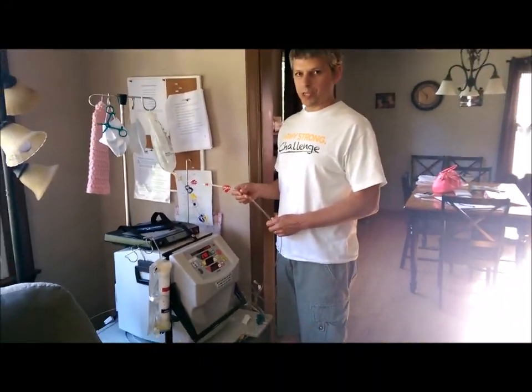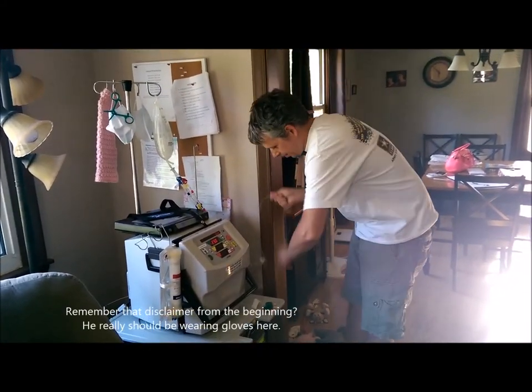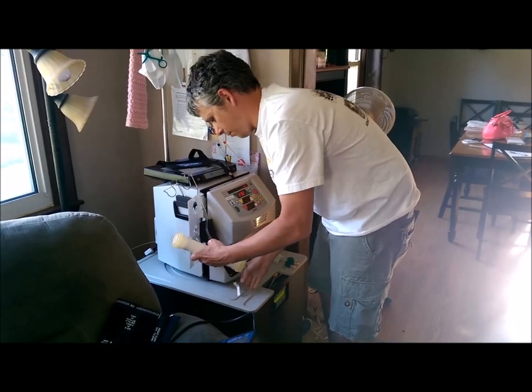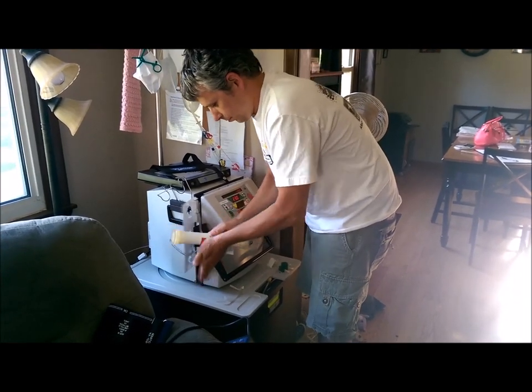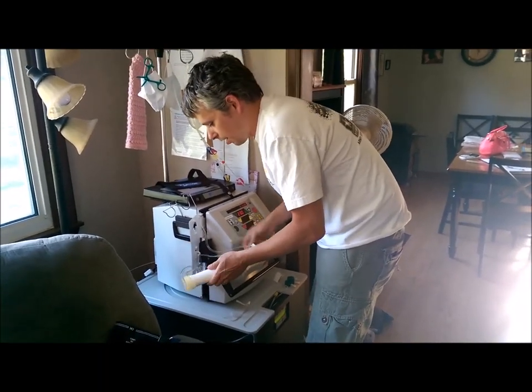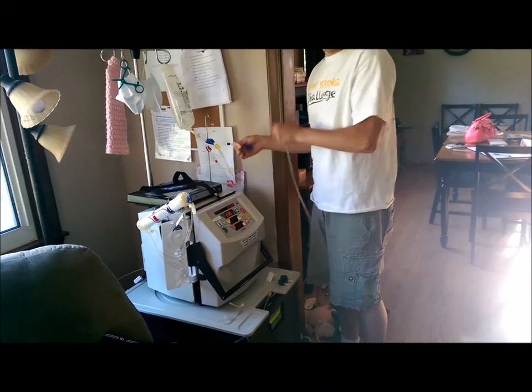The way it's explained to us is we want to be patriotic and go red, white, and blue — so I start with the red. This is called snapping and tapping, and you really give the lines a good tapping and snapping to get all the little air bubbles out. I'm going to take the filter here, give it a good whack to get all the bubbles out. I want to get as many air bubbles out of the system as possible so they don't go into her blood. It's possible to get all the air out, but little ones aren't going to do too much damage — it would actually take a lot to be fatal or cause problems. But you always want to get as much air out as possible because the blood does not like to have air bubbles in it.